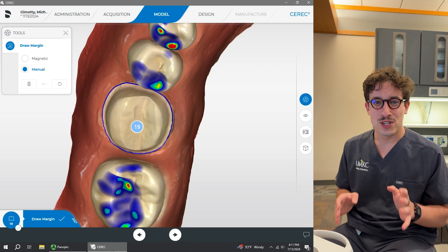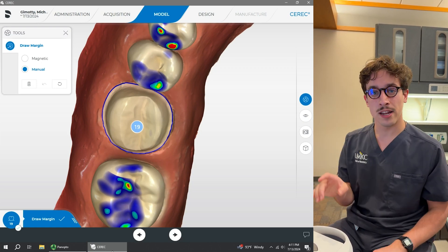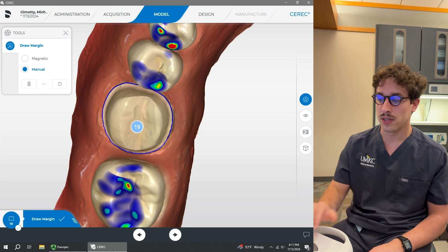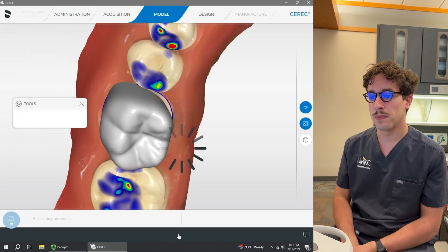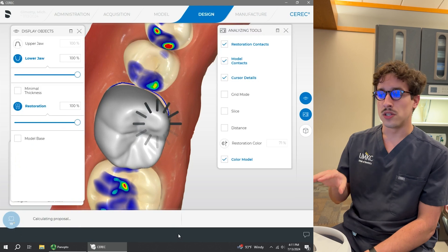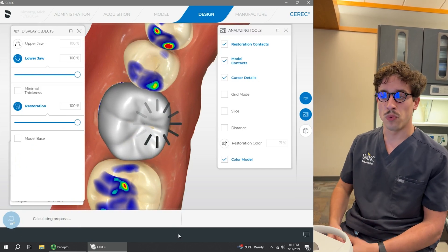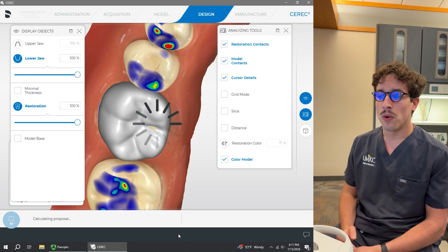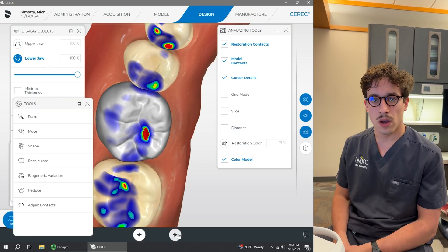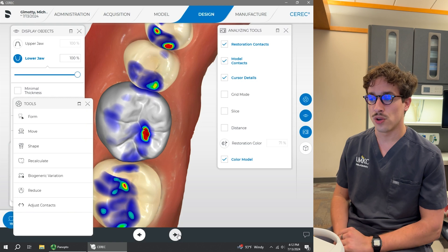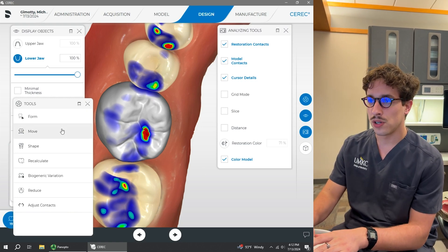Now that we've finished the acquisition phase and defined our margin, if we're going to be milling in-house, we're going to go on to the design phase. We're just going to hit the next button down here at the bottom. What it's going to do is the software is going to go through and try to auto-generate a good starting point for our crown. One of the things you'll notice with these Omnicams is that they do a pretty good job with an initial mock-up.